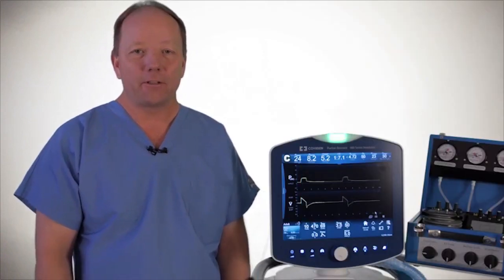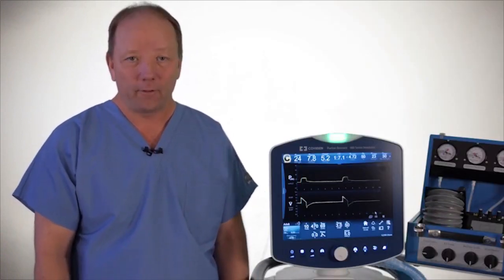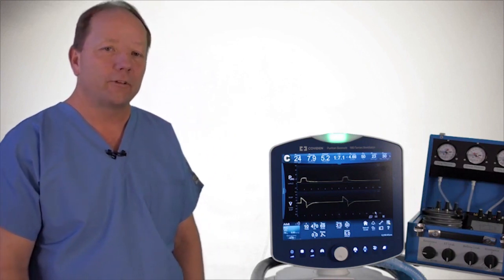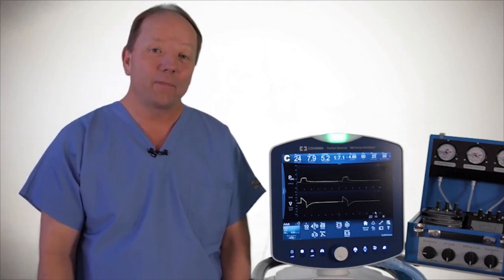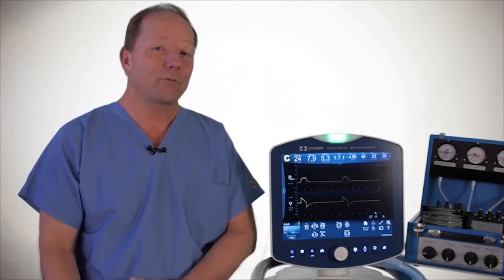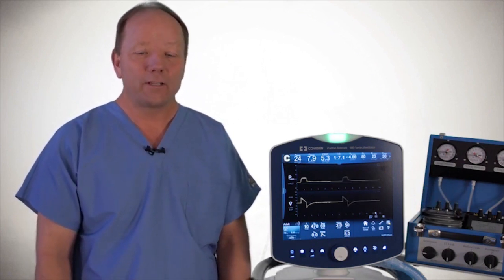The next software to discuss is the Puritan Bennett 980 bi-level software. This bi-level software is really a sophisticated pressure control — some may describe it as an SIMV pressure control. In this software, flow and volume can vary, and one of the unique things is that the strategy from an IE ratio perspective can range from a normal ratio all the way to a very inverse ratio, which some people call airway pressure release ventilation.